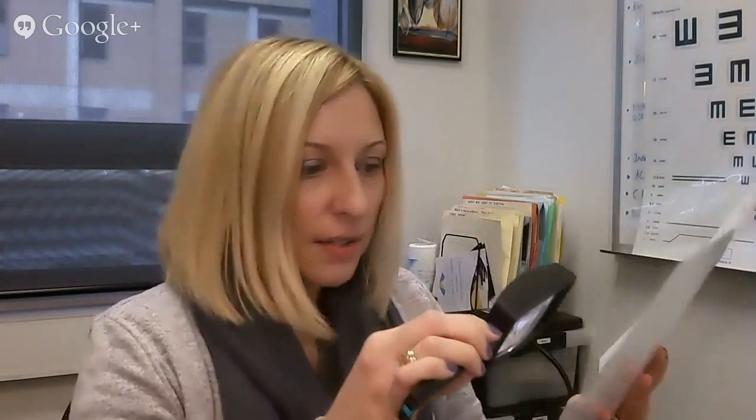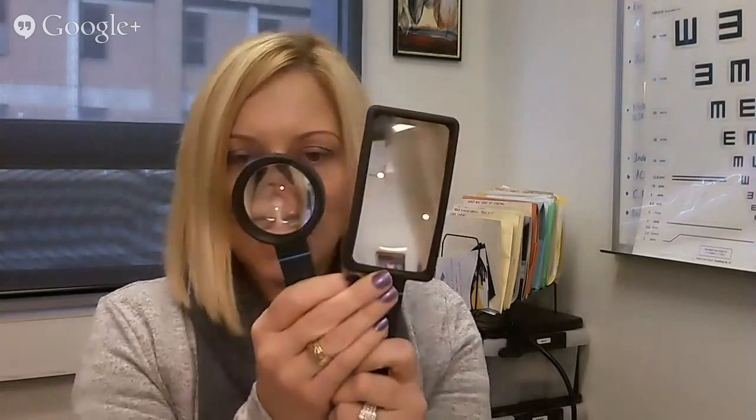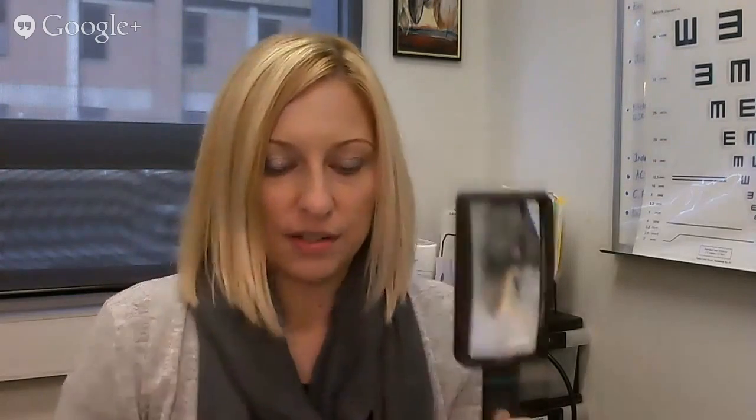The problem with hand magnifiers is that if the patient has a tremor or arthritis and can't hold the magnifier steady, it's going to be difficult — reading with a shaking hand is not going to work well. This is a three times hand magnifier. The other one I have is a six times, and you can see the difference in the fields of view between the two. The six times has to be held much closer to the page and has a very reduced field of view.